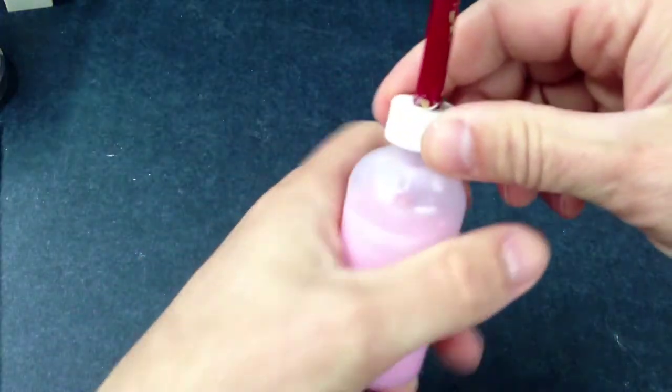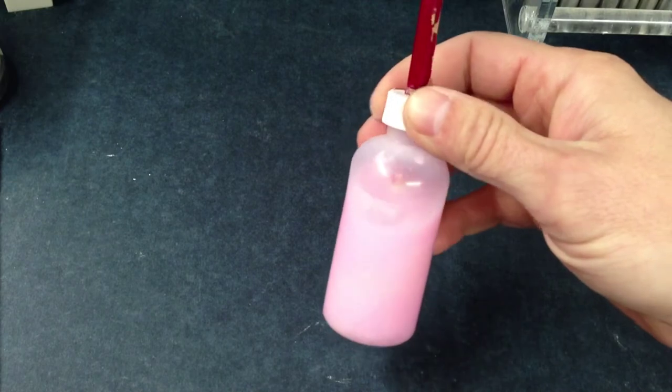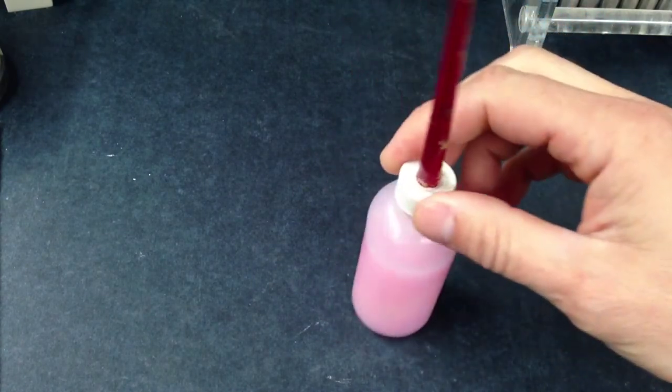Sticky wax, a lab knife (standard buffalo lab knife), and separating medium or separating foil for your cast to separate the acrylic from adhering to your model.